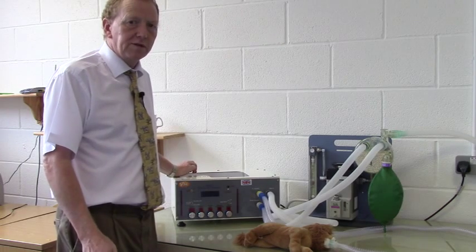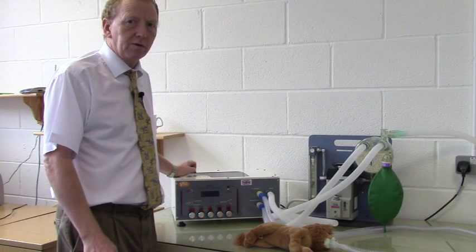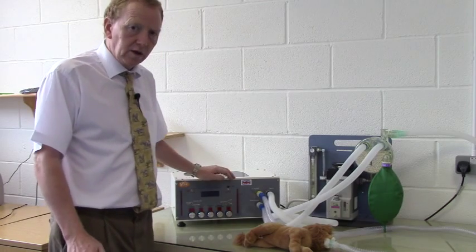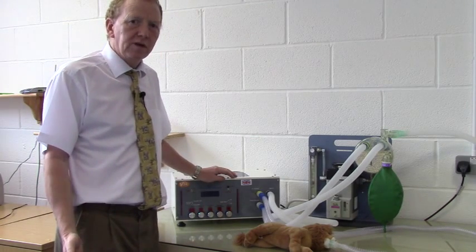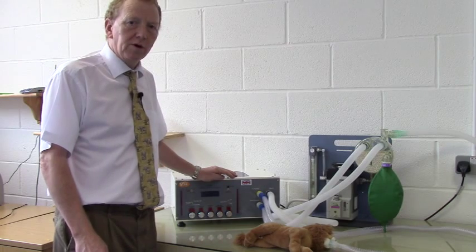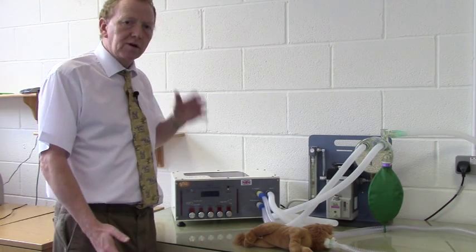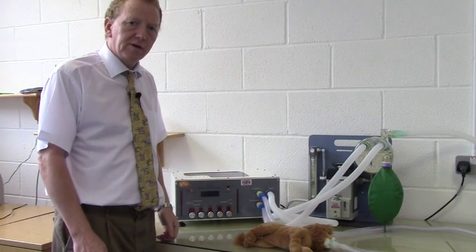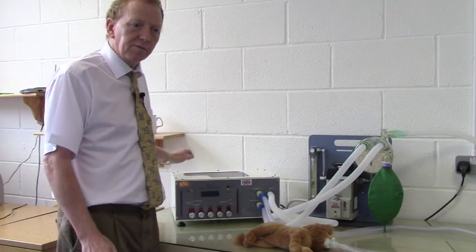This video describes the use of Merlin in volume cycling mode. Using Merlin in volume cycling mode is probably the most intuitive and simplest way of using Merlin. In essence, you determine the tidal volume to be delivered and the time in which it is delivered, set those parameters, and set the ventilator to run.